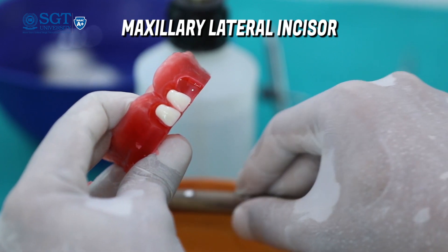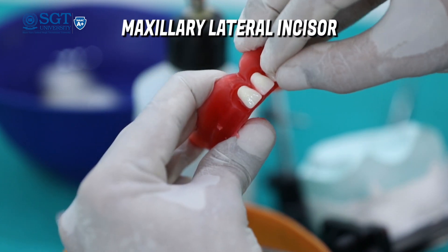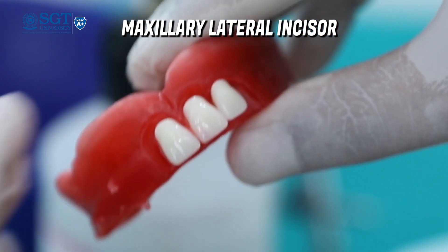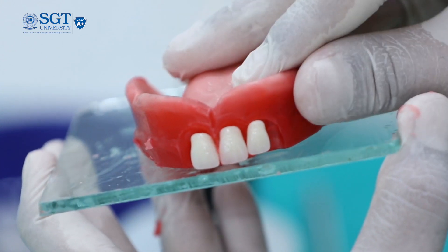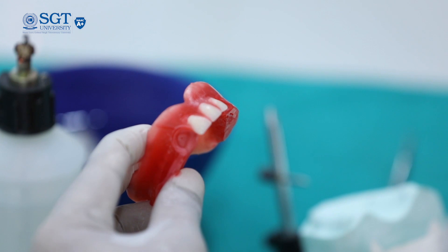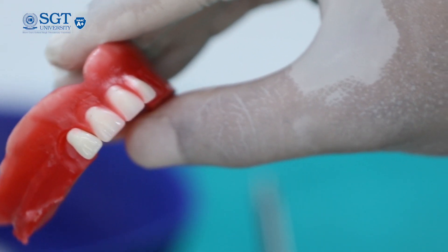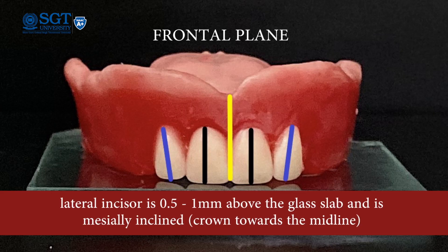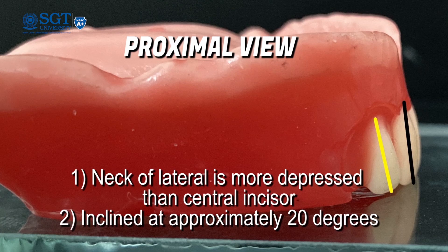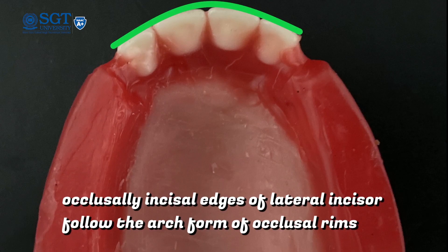After arranging maxillary central incisors, we place the lateral incisors. While arranging the lateral incisor, the following points are taken into consideration. In frontal view, the long axis of the lateral incisor is mesially inclined — the crown portion is towards the midline and the root portion is distally inclined or away from the midline. The contralateral lateral incisor is also arranged on the occlusal rim and the glass slab relation is checked. The incisal edge of the lateral incisor is 1 mm above the glass slab. In proximal view, it is inclined labially about 20 degrees and the neck portion is slightly more depressed than that of the central incisor. In occlusal view, it follows the arch form of the occlusal rim.